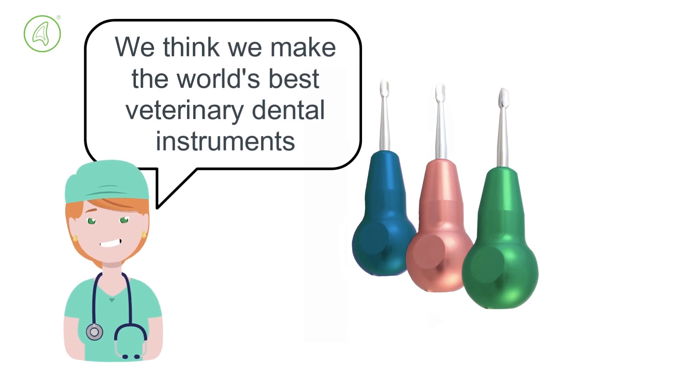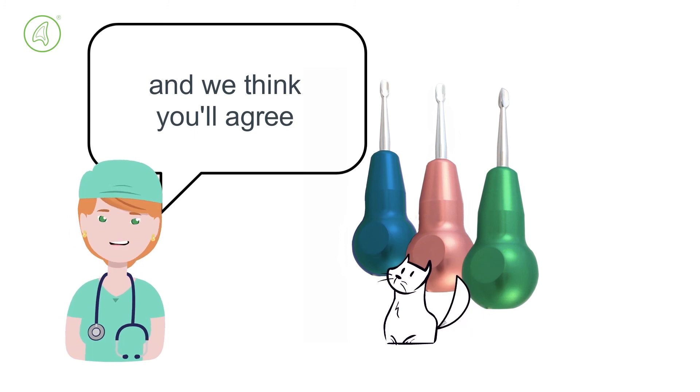We think we make the world's best veterinary dental instruments. And we think you'll agree.